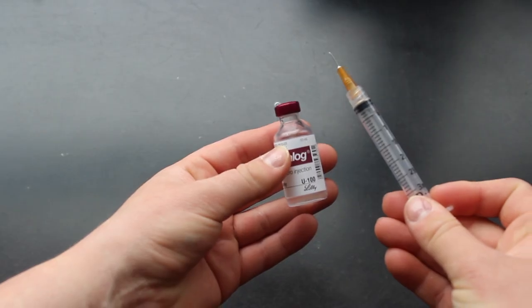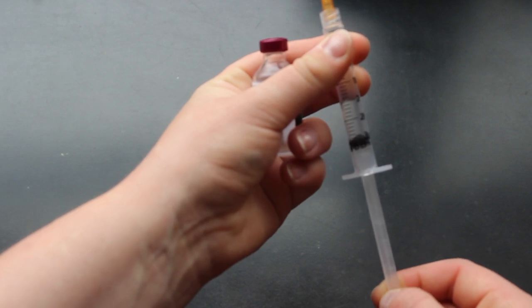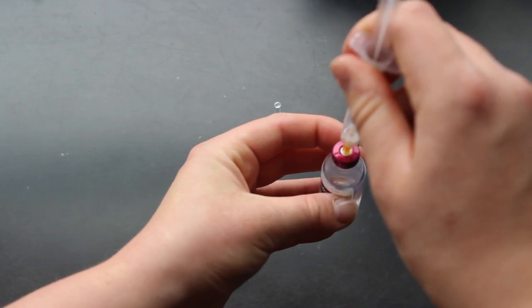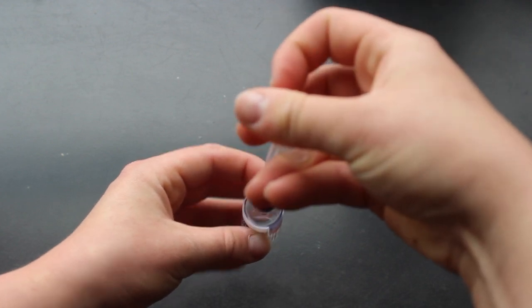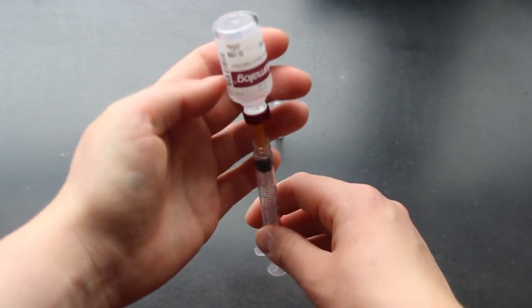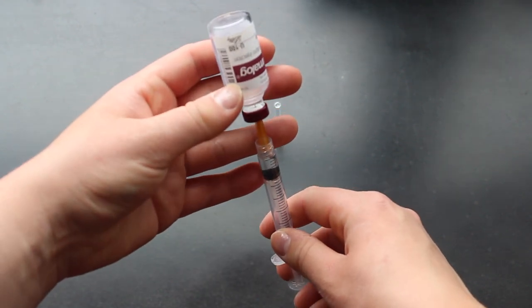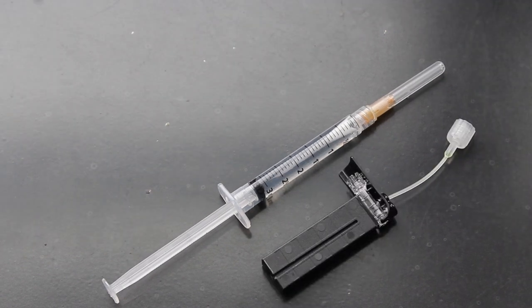After this, I'm going to fill my syringe with insulin, so I'm going to pull back on the plunger so that I can fill that up with air. This way, when I insert it into the vial of insulin, I'm able to just flip it around and it creates a vacuum so that the insulin will fill up in the syringe without me having to pull it out. It's best to let the insulin fill up at its own speed so that we avoid getting too many air bubbles.